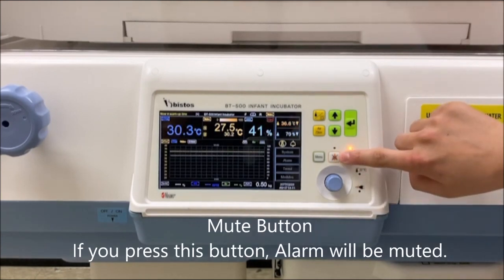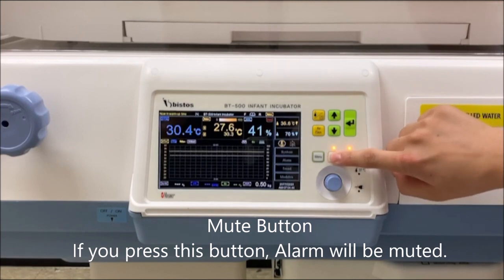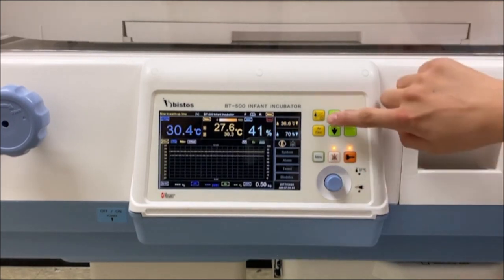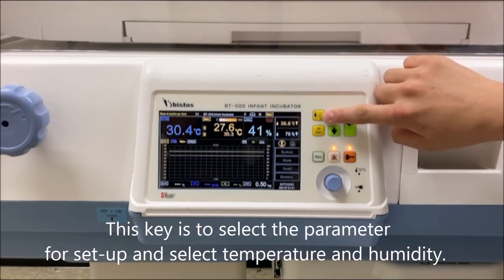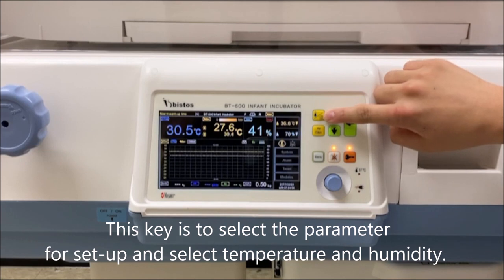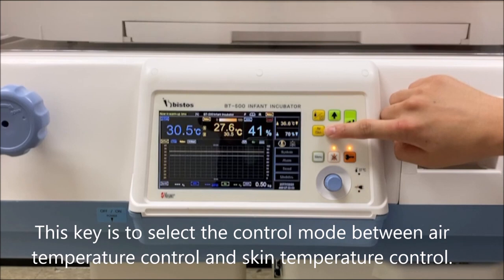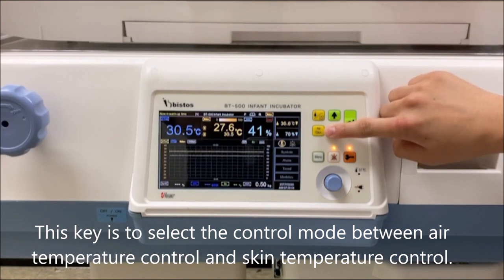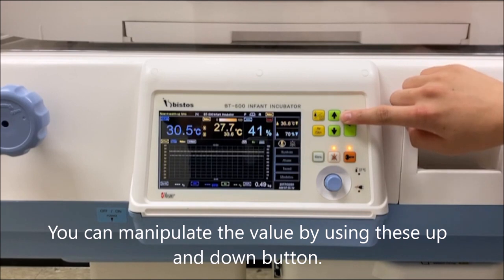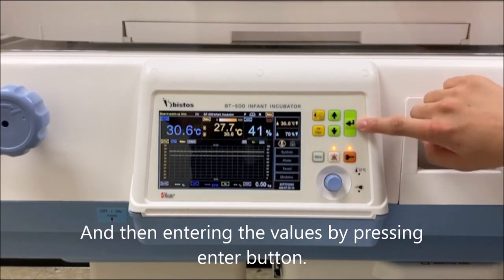This button is a mute button. When there is an alarm and you press this button, the alarm will be muted. This is the key to select the parameter for setup and select temperature and humidity. This is the key to select the mode between air temperature control and skin temperature control. You can manipulate the value by using this up and down button, and then entering the value by this button.